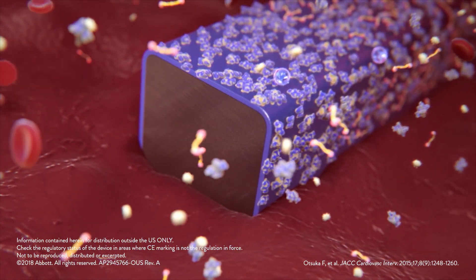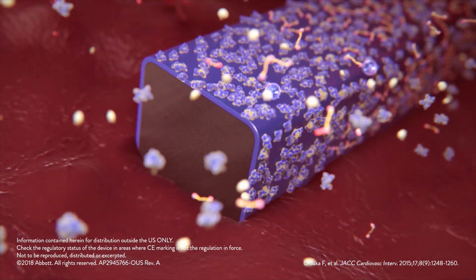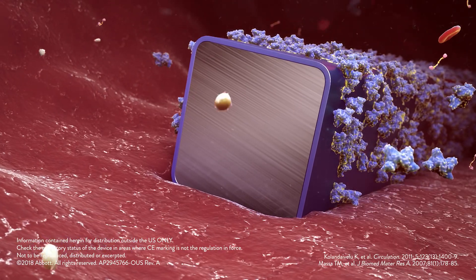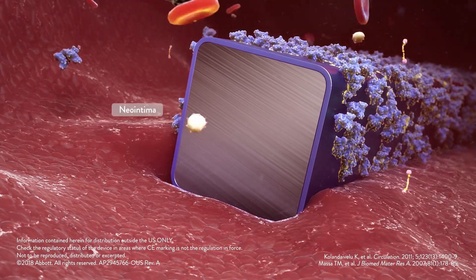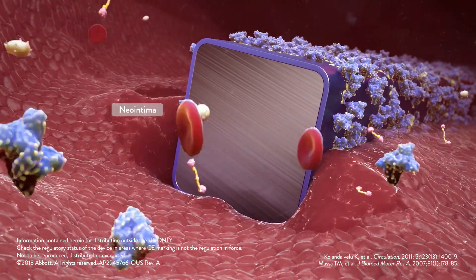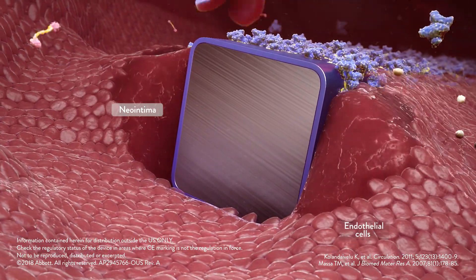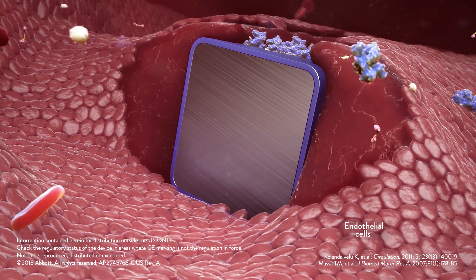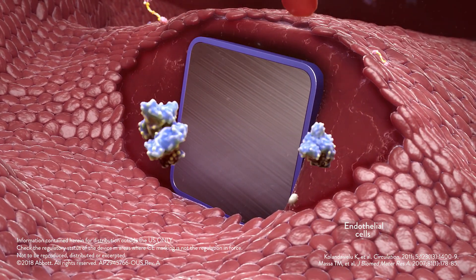response and reduced thrombus. Due to thrombo-resistance and low inflammatory responses, fluorinated surfaces encourage faster endothelialization and healing, ultimately forming a complete and functional endothelium.